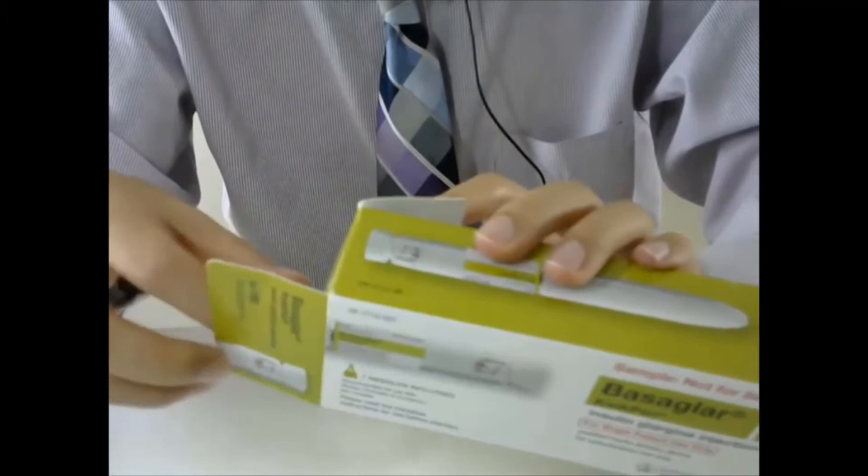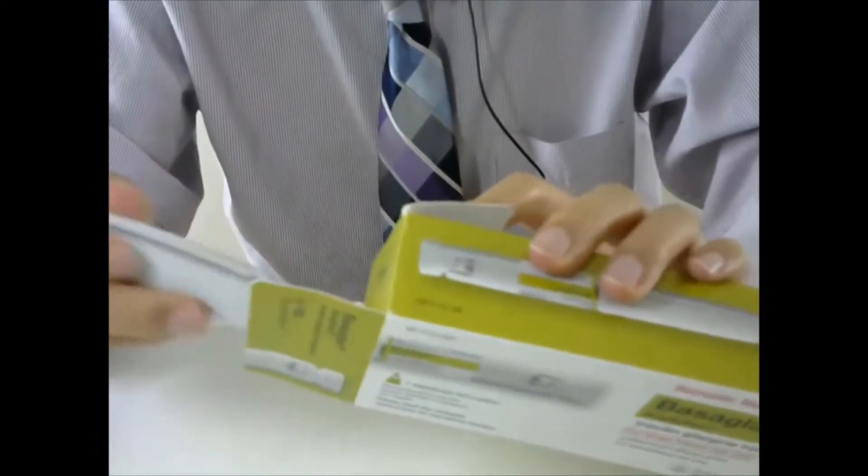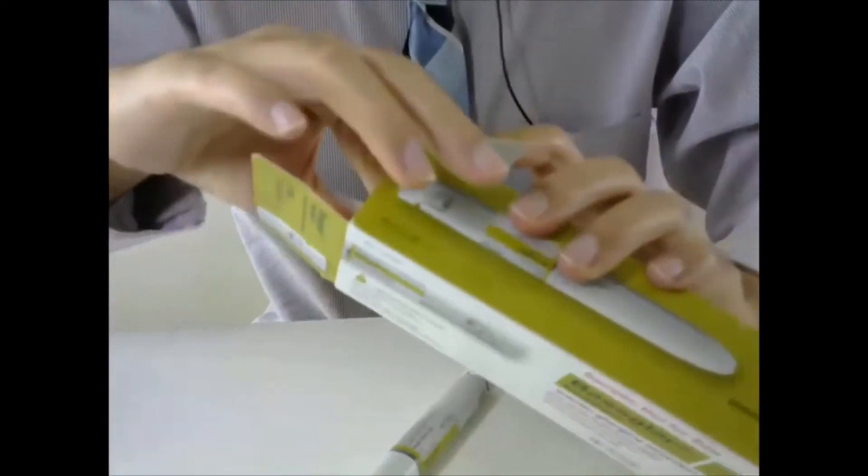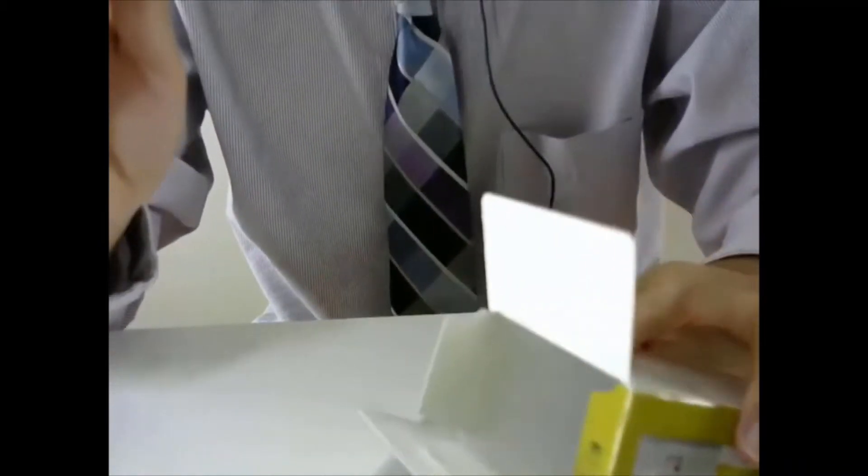So let's open the box. You see there is a pen and there are also many needles inside the smaller box.